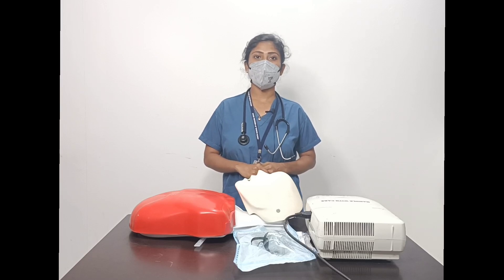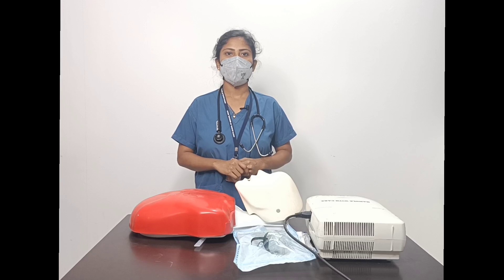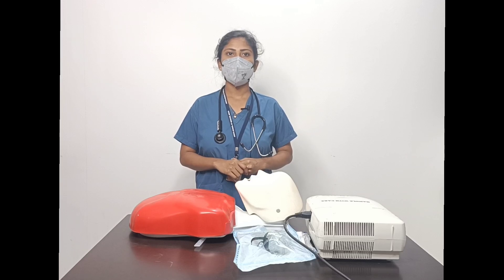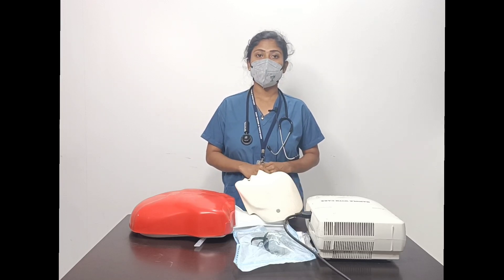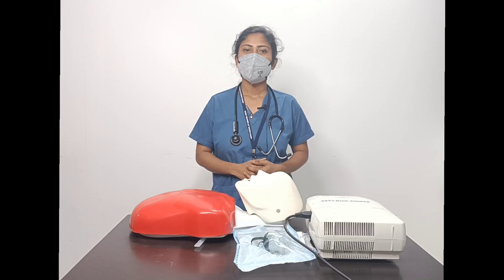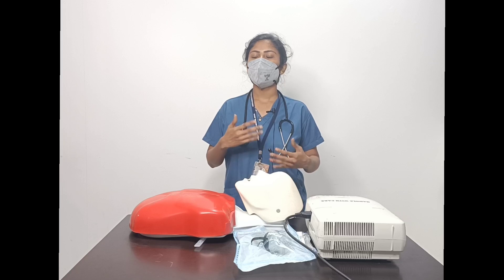Nebulization is also used in conditions such as COPD, asthma, atelectasis, pneumonia, and cystic fibrosis. The types of nebulization include metered-dose nebulization, jet nebulization, portable nebulization, and ultrasonic nebulization.